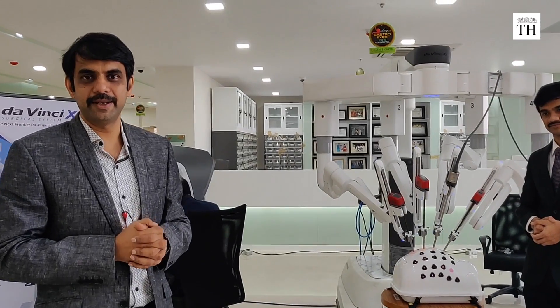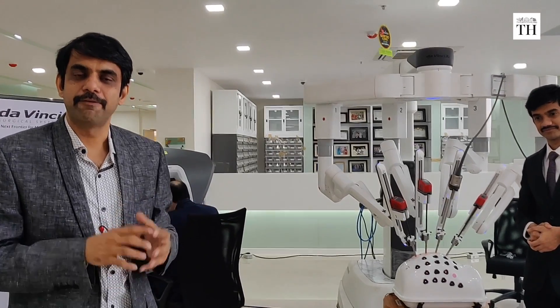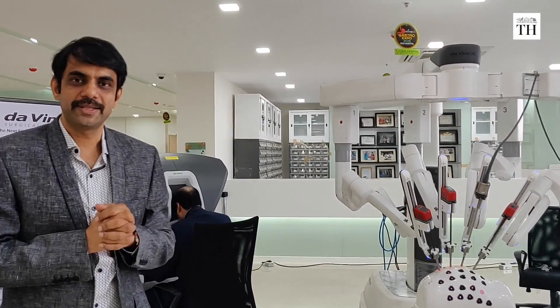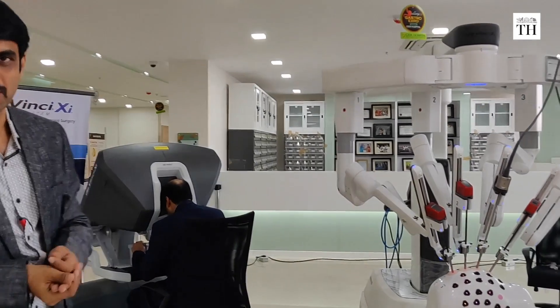Dr. Senvil Nader is going to explain the functioning of a surgical robot. The robotic system consists of three important components.